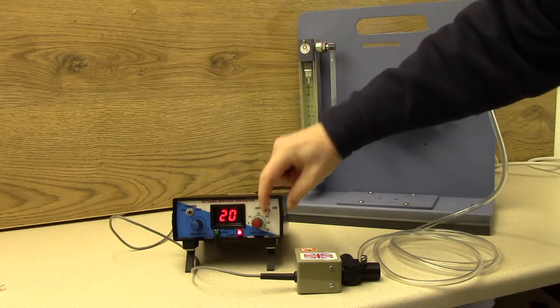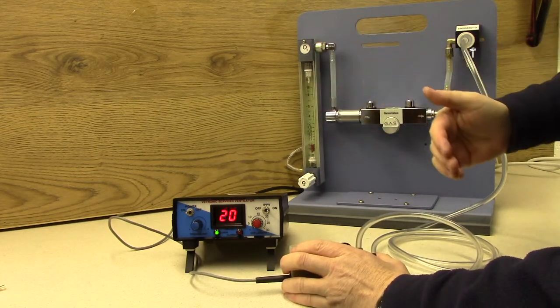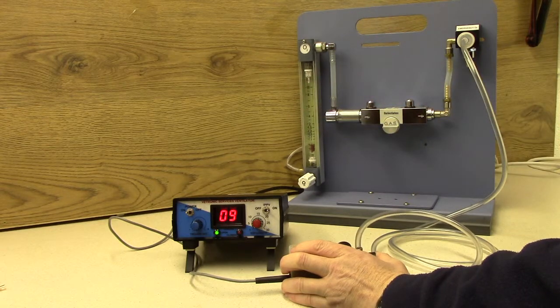Set IPPV to run and put your thumb over the ET connector port. The incoming gas will cause a rise in pressure inside the valve, triggering the valve.